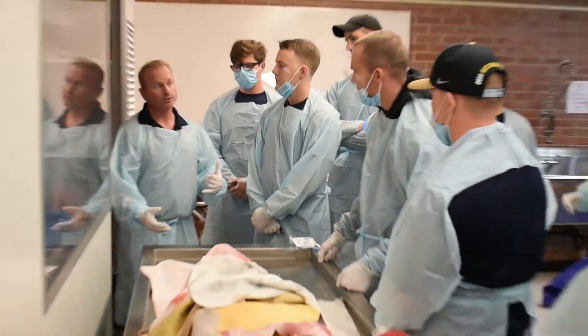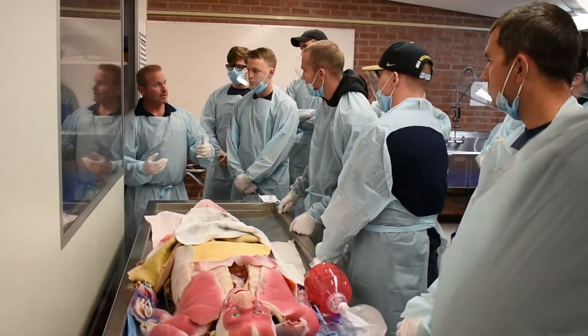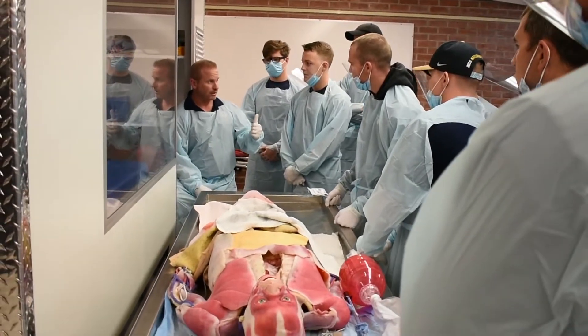So the reason why I'm hammering you guys with the Mac 4 is because I've never in 26 years ever seen anybody run out of blade with a Mac 4, including myself — but I have with the 3, multiple times. So I want you to practice with the Mac 4. We have 3s on the table, we have Millers, but you need to be proficient in that Mac 4 blade, in my opinion.